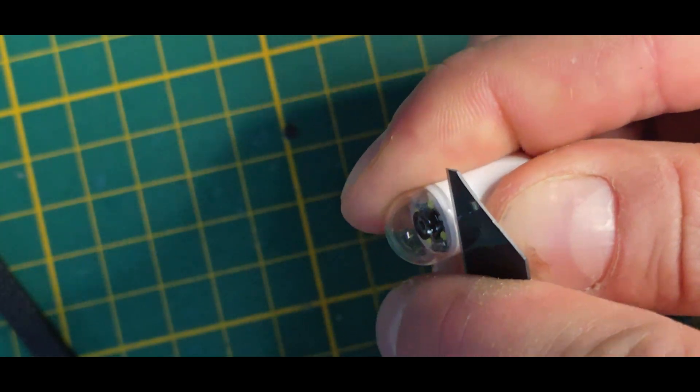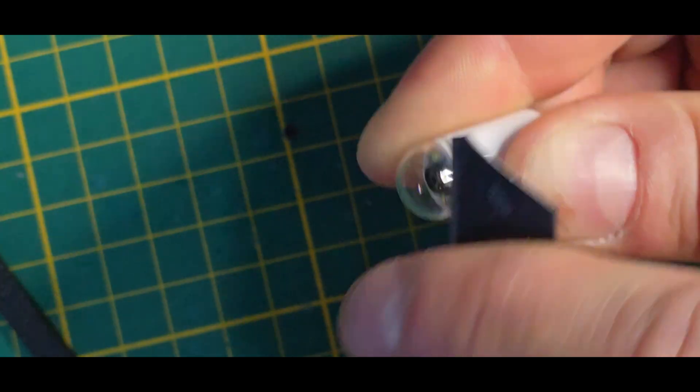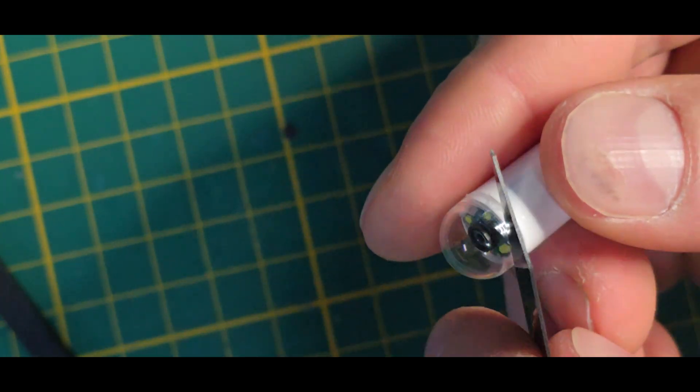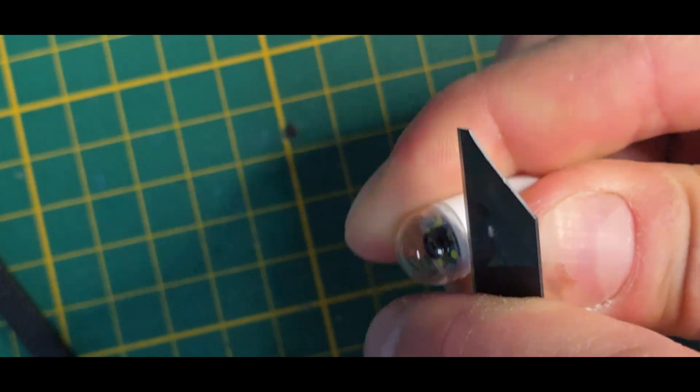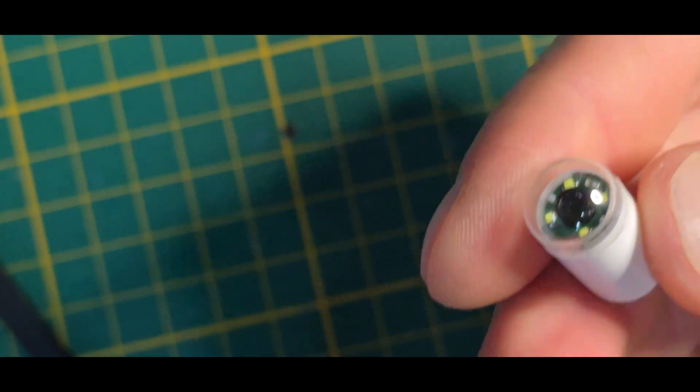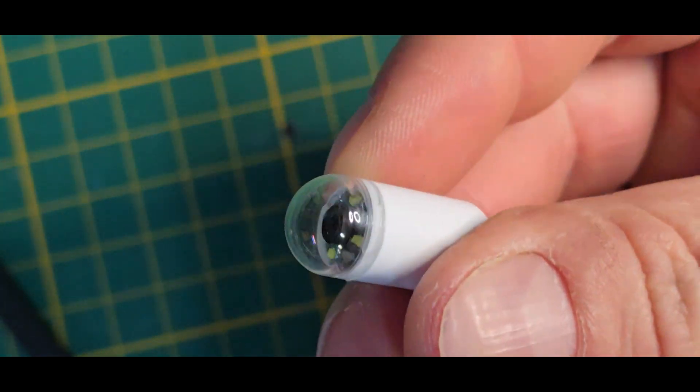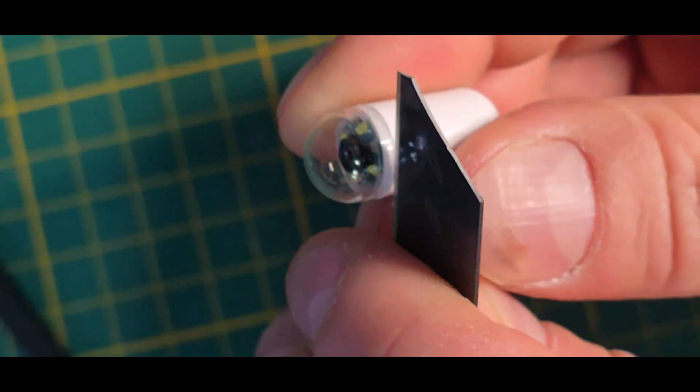I mean it has to be glued quite a lot to not get wet when it's inside of your body. So far it does not look so good to be opened that way.